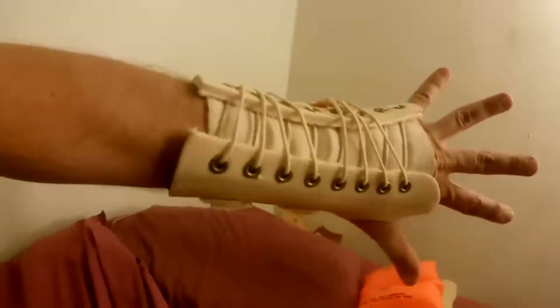And you have the Velcro straps on the bottom that pull on the other elastic strings, and the strings go back and forth crisscross above the wrist for even pressure. This is not as complicated a wrist brace as it looks, but it's pretty elegant and functional, and it looks rather good really.